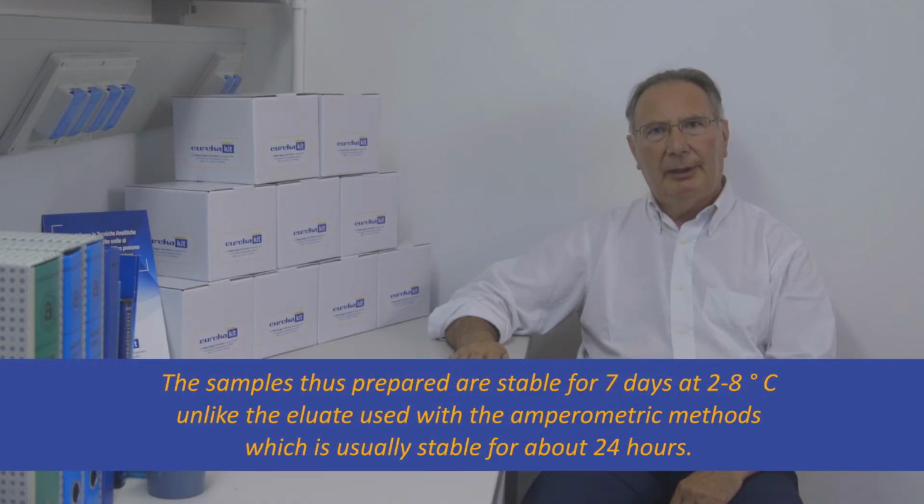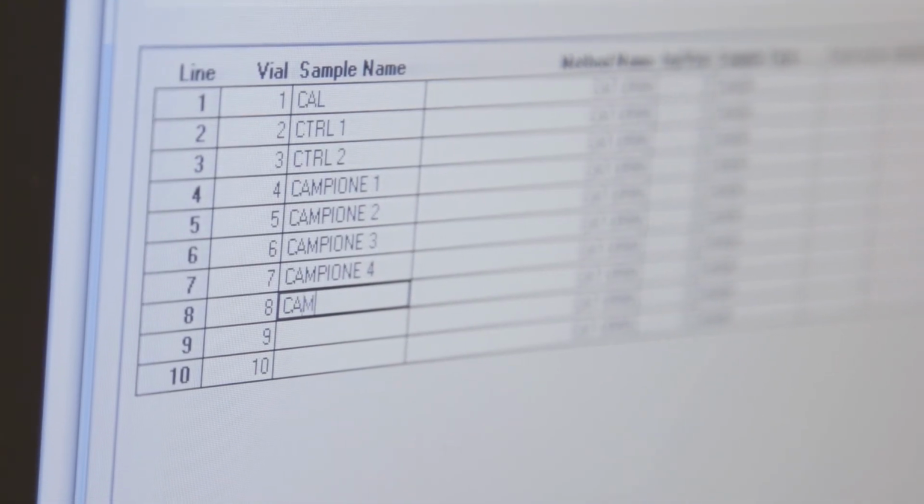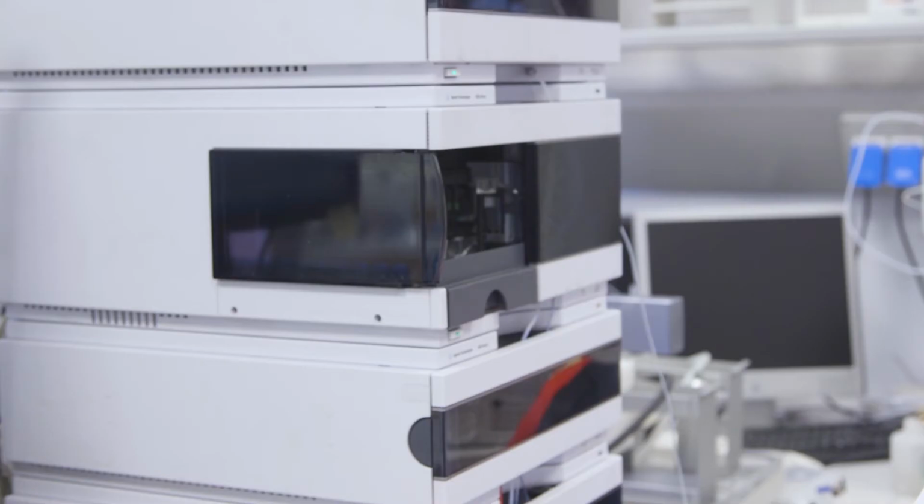The samples thus prepared are stable for 7 days at 2 to 8 degrees Celsius, unlike the eluate used with the amperometric method, which is usually stable for about 24 hours. We are therefore ready to perform the injection of the entire analytical session of urinary catecholamines. Let's move to the HPLC system and activate the method Eureka kit catecholamine in urine, so that the system sets itself to the correct parameters.